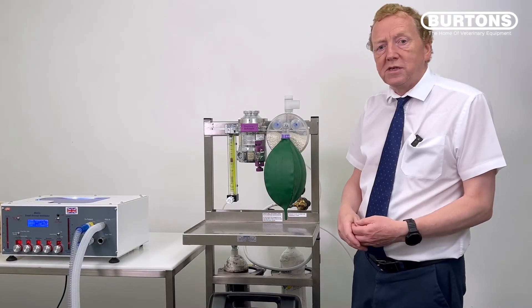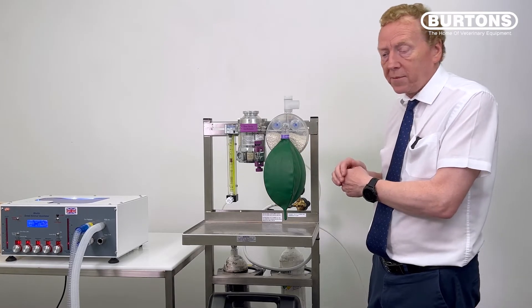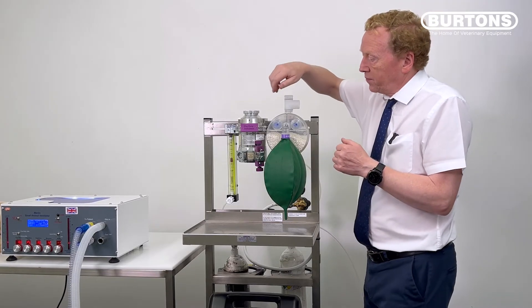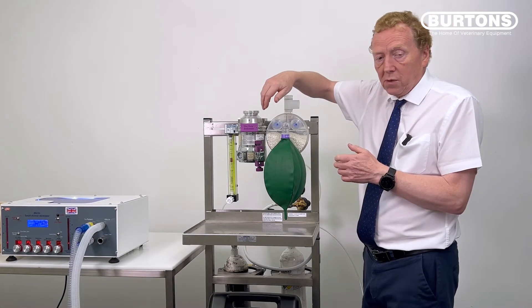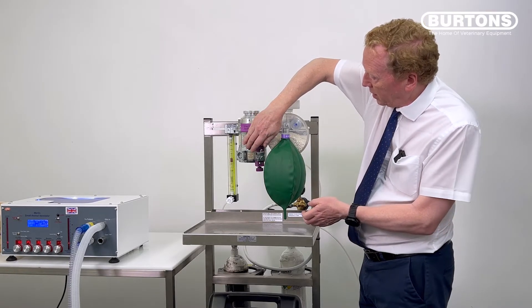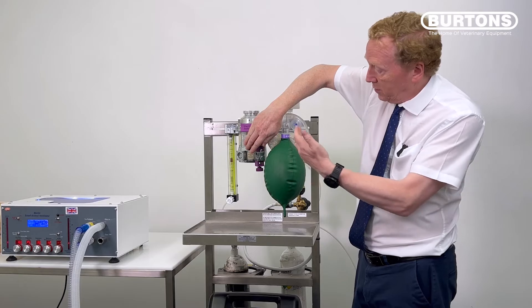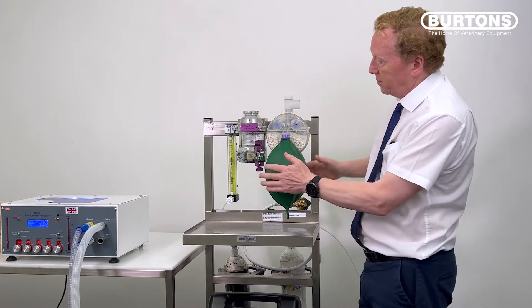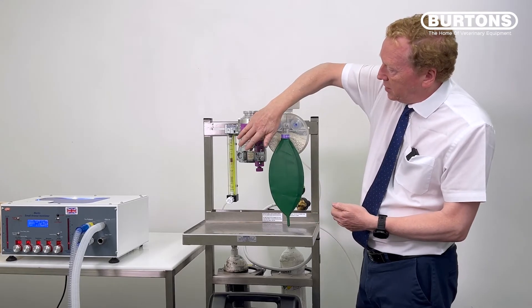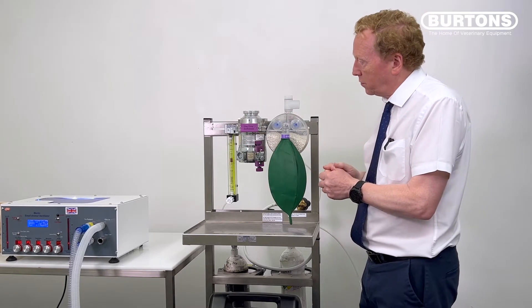So how do we perform these tests? Well, as I said, they're very simple to do. So let's just look at the disposable circuit here, the circle we got here. We got a fresh gas flow coming in. All we need to do is occlude the inspiratory port of the circle and see whether the reservoir bag fills up. So I'm going to put my ball of my hand over that. And yes, we can see the bags filling up. And we know this one works because we showed it just now. So we're happy with this. But this is what indeed you do. And then if we empty that bag and occlude it, it does start to fill back up. And there's no pressure. If I occlude and release, there's no release of pressure. So very simple. This is suitable for use.